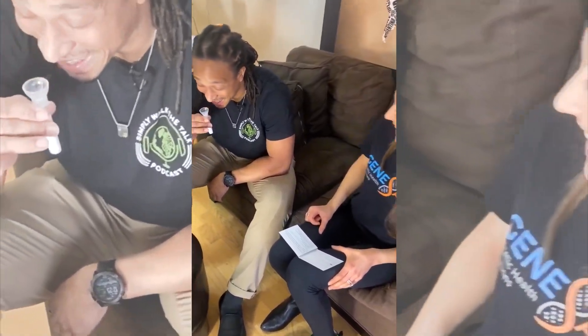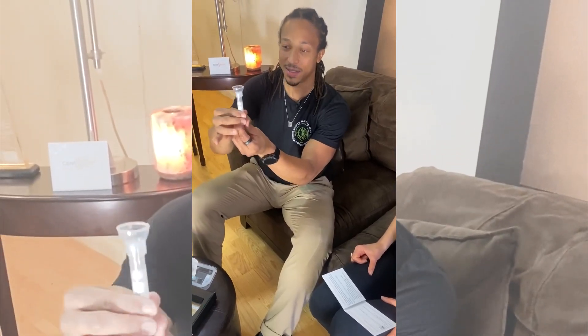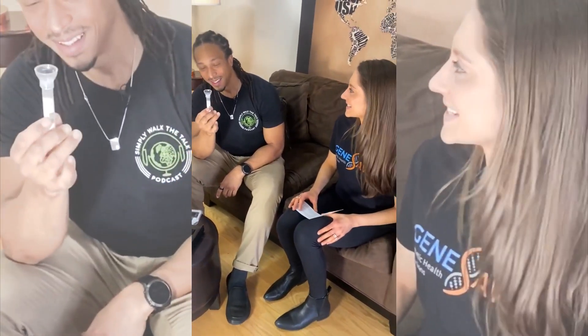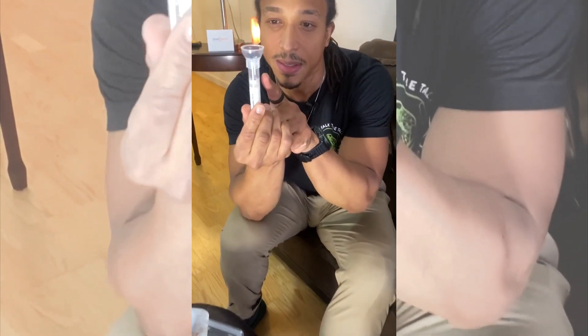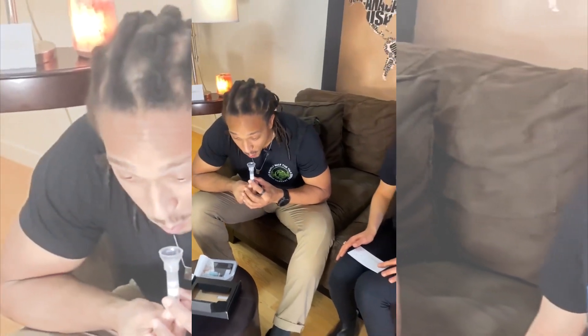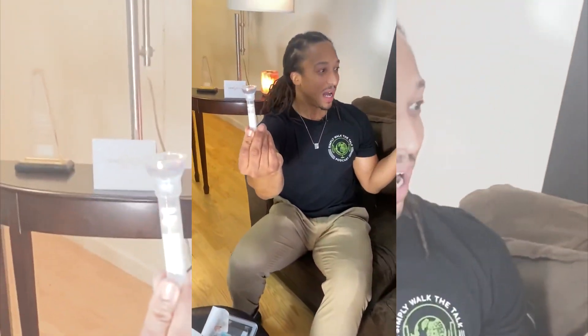He's a strong spitter. One of the better ones I've seen. I've got to get... Oh! It's not too bad. I've got to try to build up spit. I mean, it's not... I believe in you. You got this. You were born for this. This is much harder than I realized. But it's okay, because it's still very easy. You see that little line there? I've got to get the spit to that line. Spit here. Hey! There we go. We did it! Two tries. Two tries.